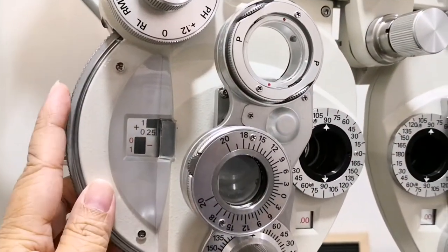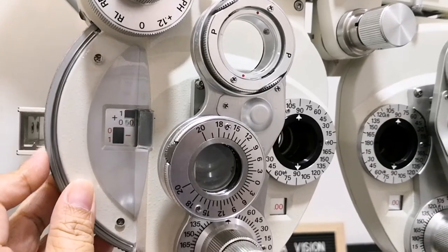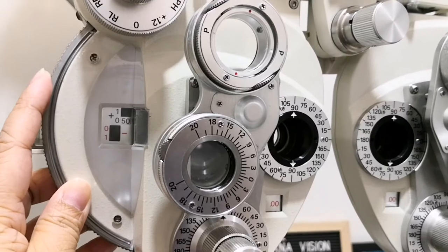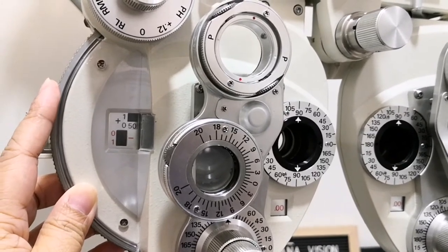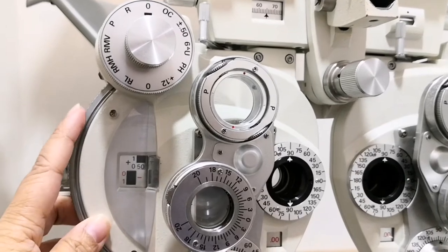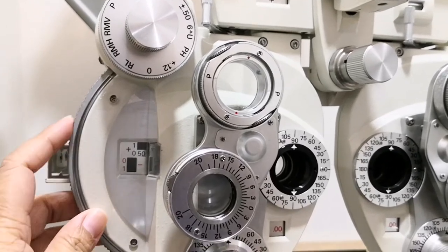The spherical lens control is divided into three: a weak spherical dial, strong sphere control, and a sphere power scale. The weak spherical dial is a large wheel at each side of the phoroptor. It enables us to have an increment of 0.25.